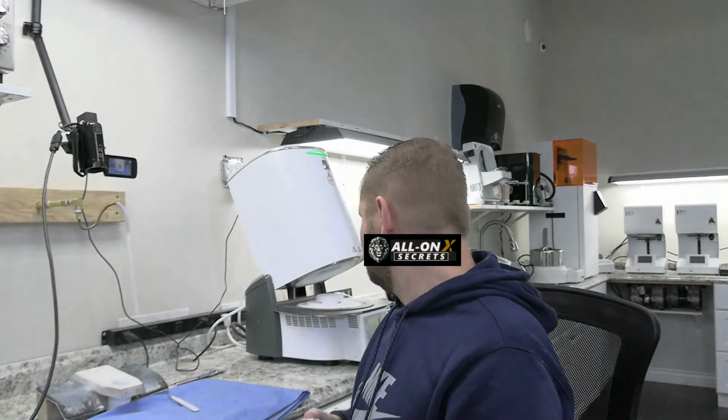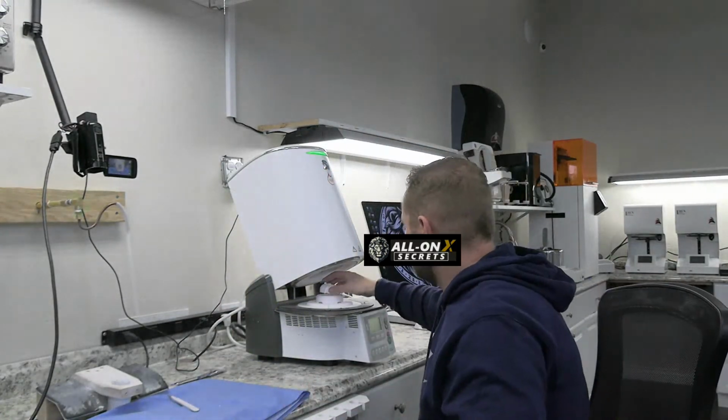I'm not sintering this with connectors into a larger frame. I can't remember the word used for it right now, but if you're doing a really good job keeping the device symmetrical, meaning that there's not one place that's really thin and another place that's really thick, then I don't think there's an issue. I haven't had any problems with sintering without a framework. I like this because it goes into my sintering oven a little better. So we're just going to go ahead and put it into here.